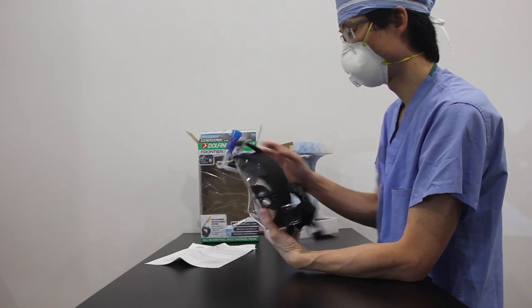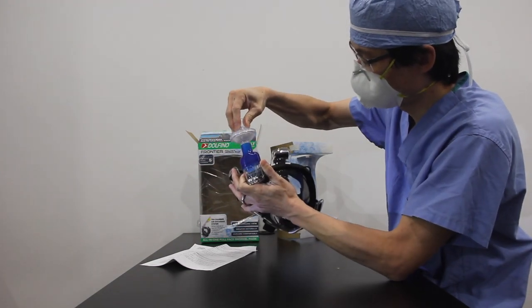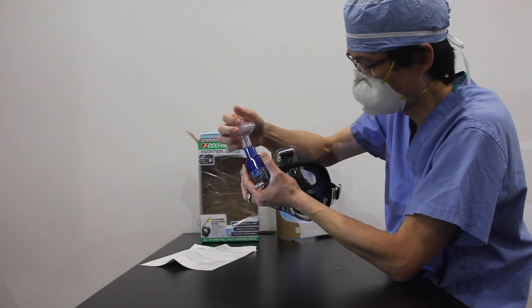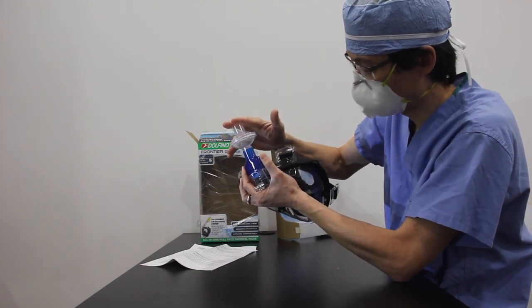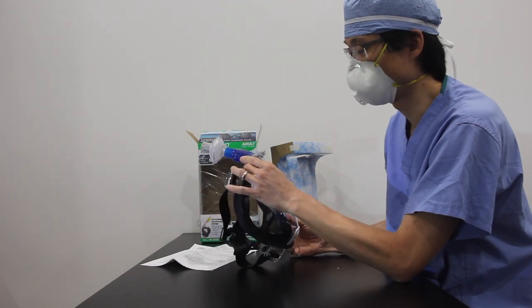So adapter, you take your filter and you just put it right in. And it fits really nicely. You can tell that the injection mold has a little taper in it. And as you push it in further, the seal gets tighter. It's a really nicely made injection mold.